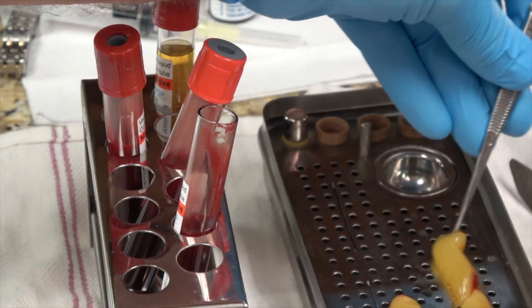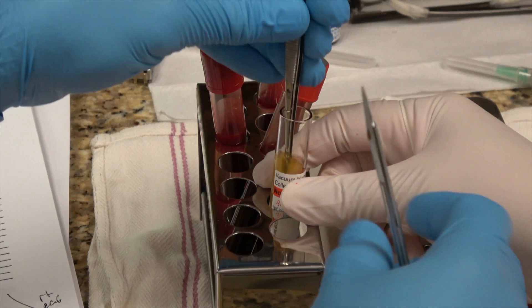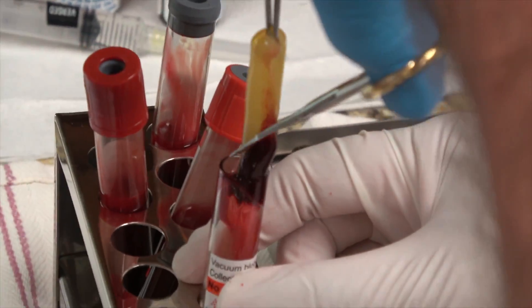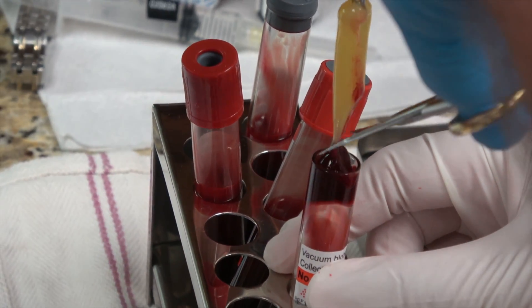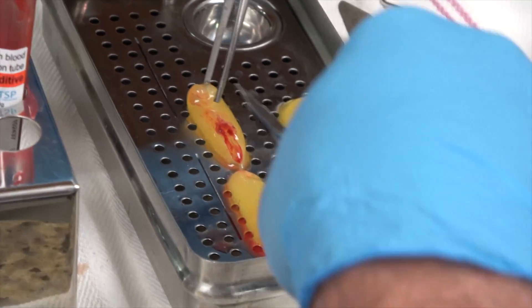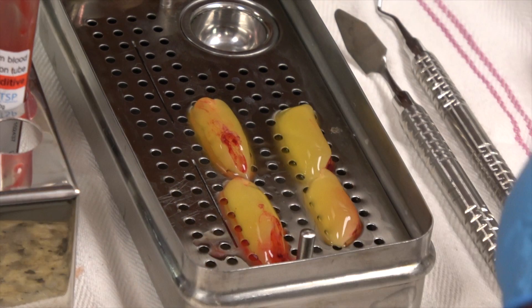You see, it looks like a little caterpillar, and you put this on the perforated tray. So in this case, obviously, we had four vials, and these are tissue forceps that I'm using to pick up the clot. Okay, so this is attained prior to my surgery.